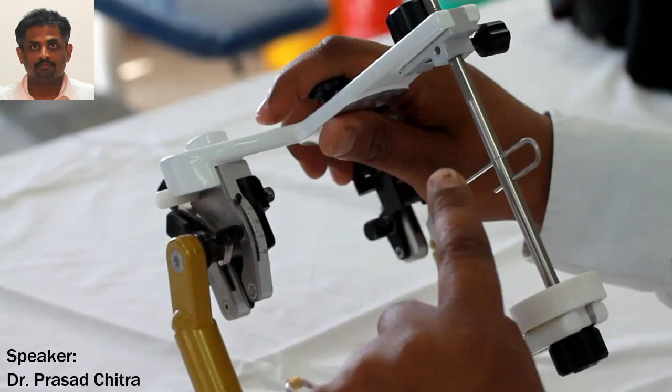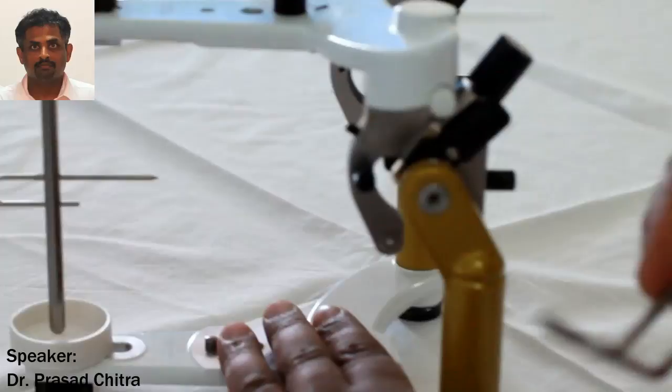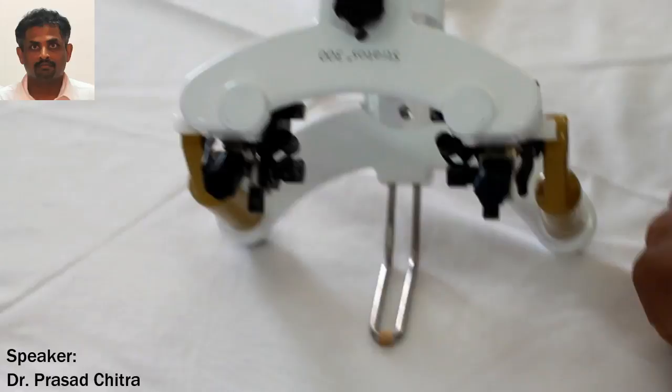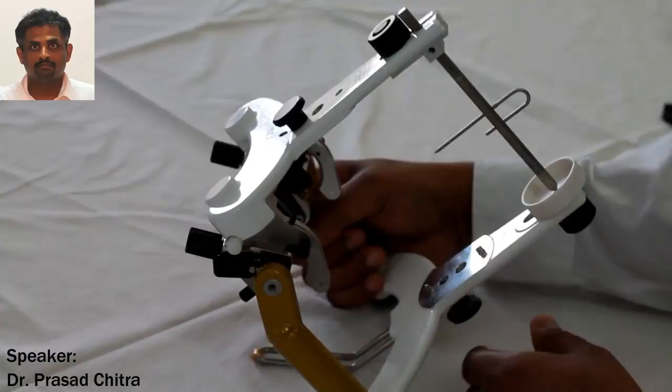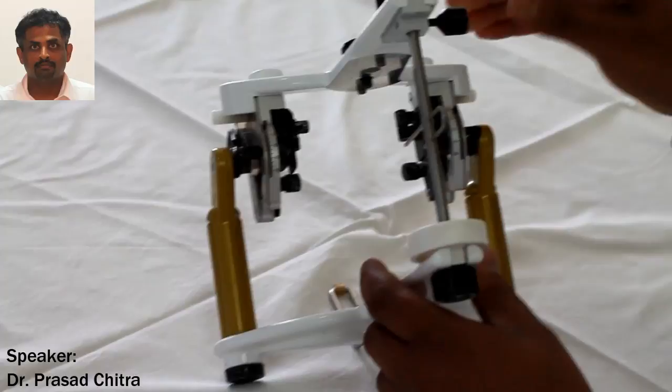At the back of the articulator, there is also an inclined support which can be removed. The articulator can be inclined at almost 45 degrees using this support, and the various aspects of the dentition can clearly be visualized without straining the operator's hands. Different perspectives of the occlusion and possible interferences in movement can be determined by using the inclined support holder. When the articulator is reversed for mounting the mandibular cast, the inclined support holder can easily be removed.